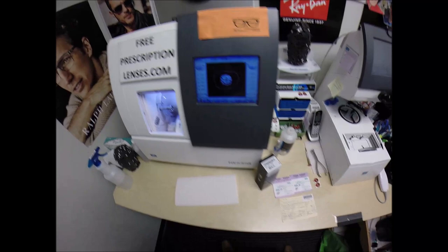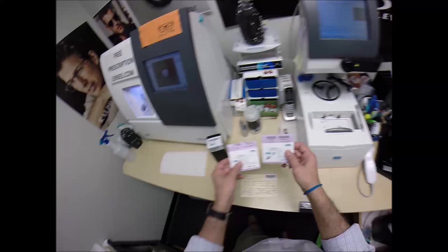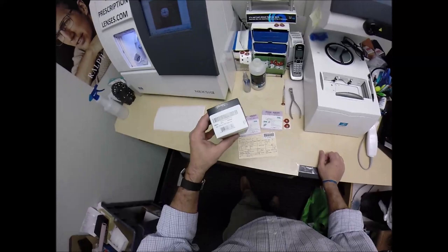David in Wesley Chapel, Florida. See more better with FreePrescriptionLenses.com but call me Moe, Moe Better because I'm going to have you seeing more better, looking more better and I'm going to show you how I bring that loving feeling back to glasses when I cut your new prescription lenses with anti-glare for your Oakley AirDrop, the 8046.